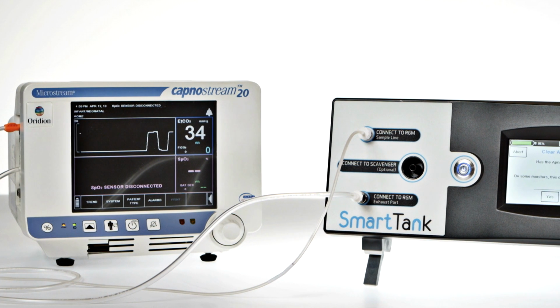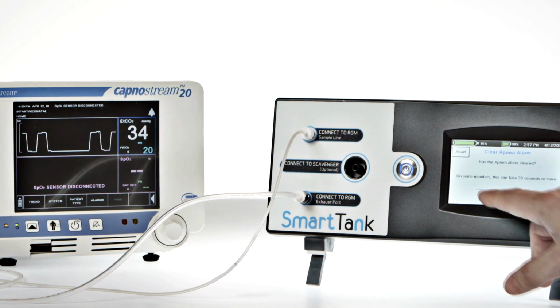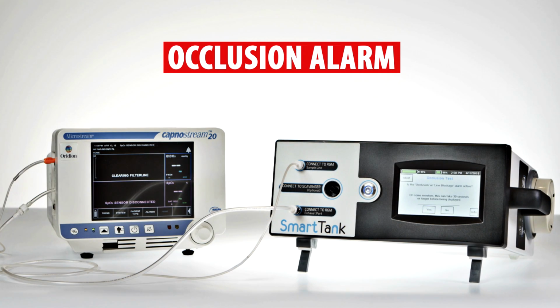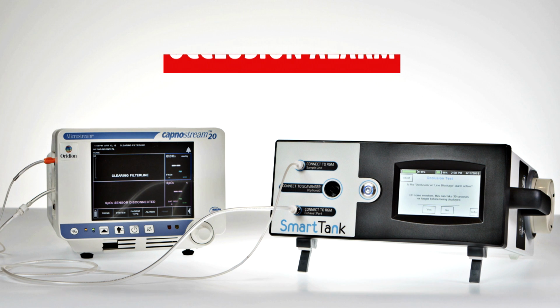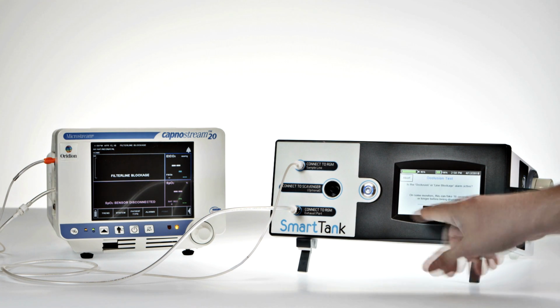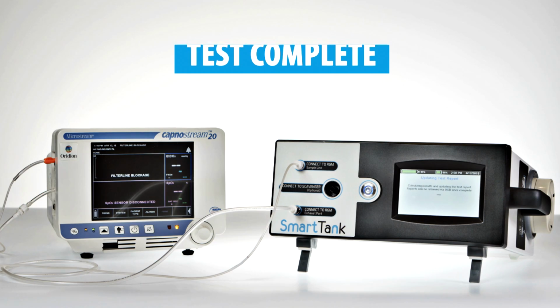Normal breathing will be simulated to clear the apnea alarm. Press Yes when clear. Finally, the SmartTank will test that the sample line occlusion or blockage alarm is functioning properly. After a short pause, indicate if the alarm is active by picking Yes or No. That's it. The respiratory gas monitor test is complete.